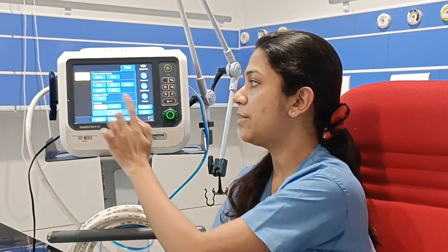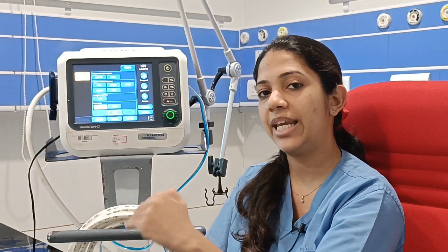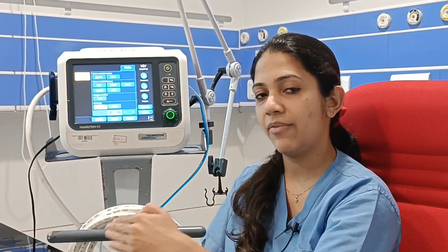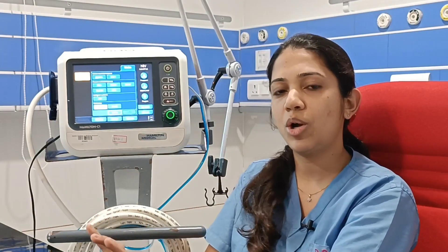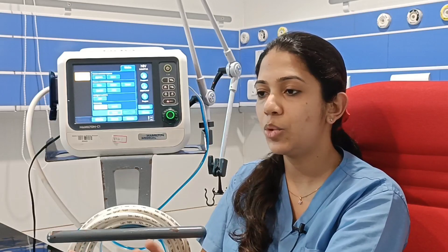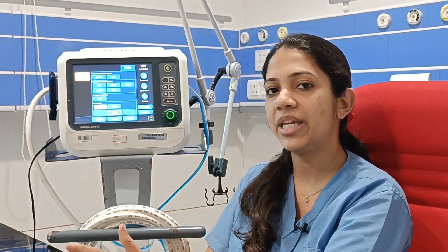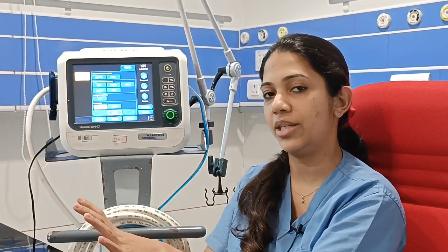In intelligent mode, the ventilator checks how the patient is responding and decides the mode for the patient, adjusting accordingly. In non-invasive mode, we are usually giving positive pressure ventilation to a non-intubated patient.